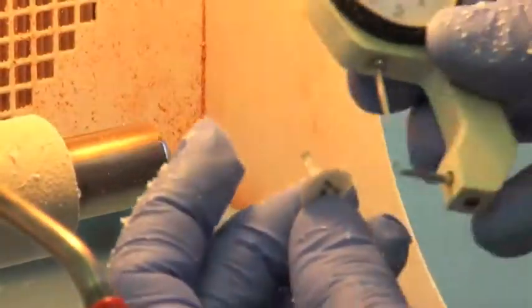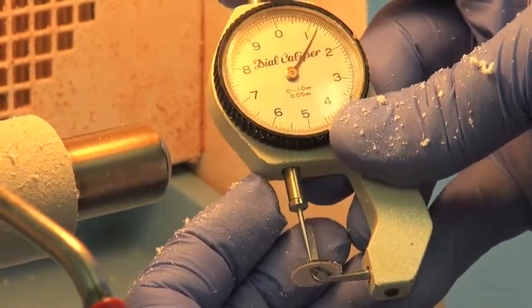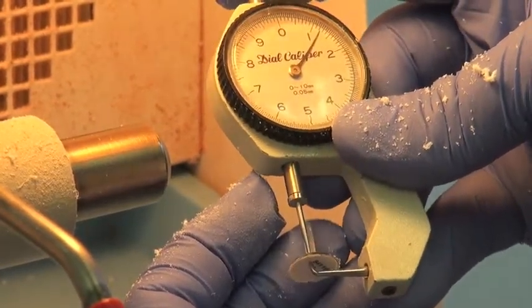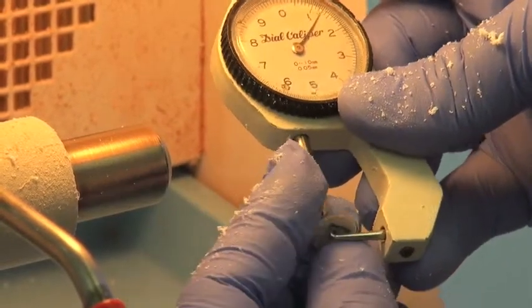So at this point, let's check it and see how we're doing. Okay, we're about 1.25 millimeters of thickness at this point. So let's continue.